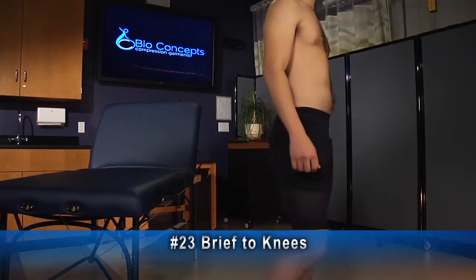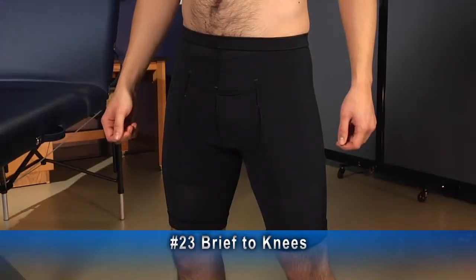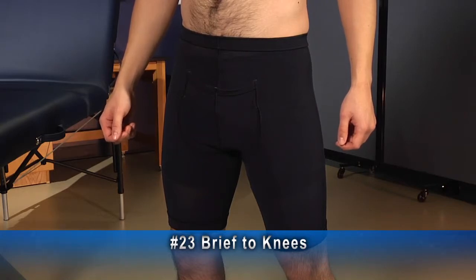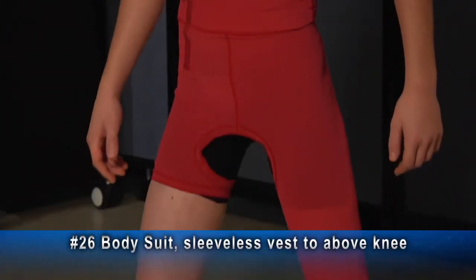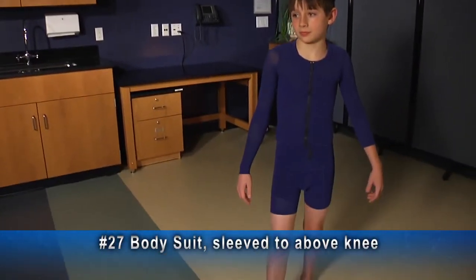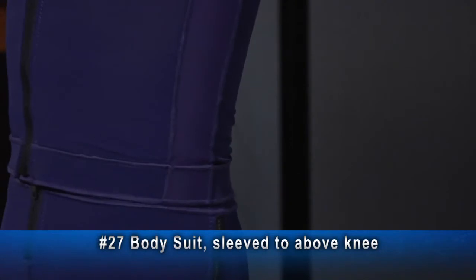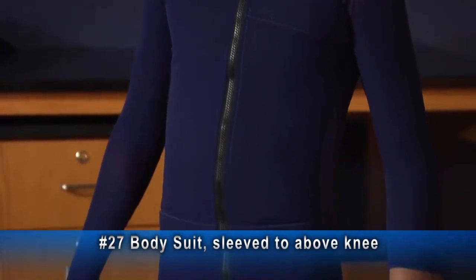This is a number 23 brief with two legs above the knees, featuring a standard one-inch elastic waistband and one-inch elastic bands at the ends of the legs. This example for a male has a horizontal fly. Number 26 is a sleeveless body suit — the garment shown has a brief and a leg below the knee on the left, an open crotch, an offset zipper to the right, and silicone lining. Here is a number 27 body suit sleeve to above the knee, with expansion panels on the left sleeve and torso, a gusset on the left side, a zipper on the left leg, and a zipper on the anterior torso.